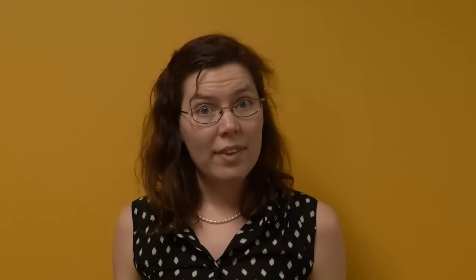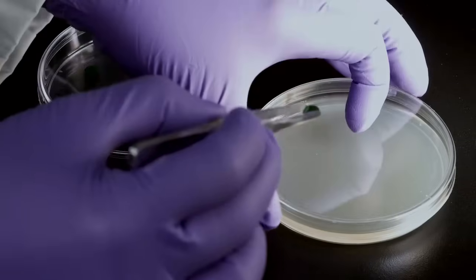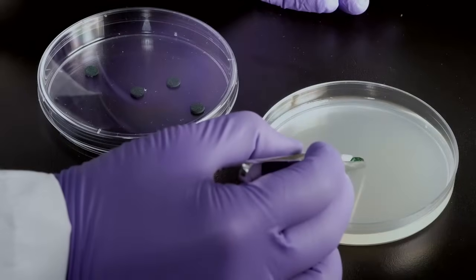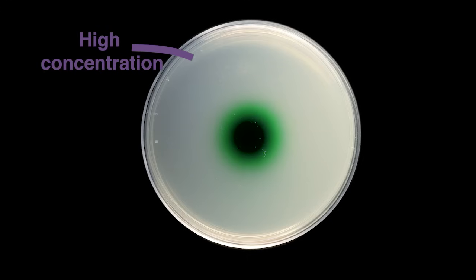Let's explore how this works. We soaked the antibiotic discs in food coloring so we can see how the antibiotic diffuses into the agar. Notice that the concentration decreases as you go farther from the disc.